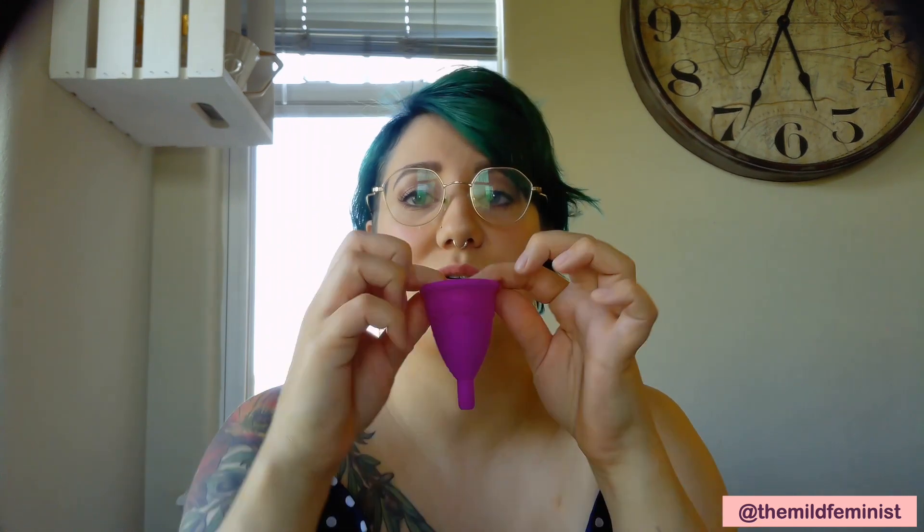Okay, let's get into the nitty-gritty of things. Today I'm going to be doing an in-depth tutorial on how to put in a menstrual cup. The cup I'm going to be demonstrating for you guys today is a bell-shaped cup. If you saw my previous video on the benefits of using a menstrual cup and the size you should be using, you know there are lots of different types of cups out there, but this is just the one I have and it's also the most common that you would see when purchasing cups. Eventually I am going to be covering tutorials on other types of cups, but for today this is just the one I'm doing.